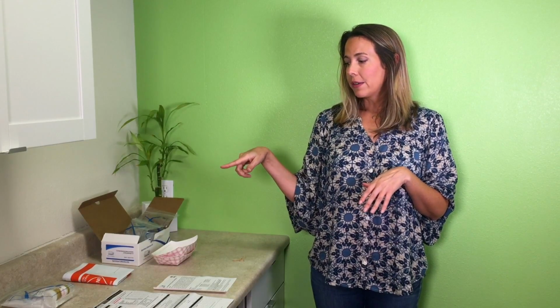So you're all done with your collections and now you're ready to ship. It's best to ship within 24 hours of your last collection. The vials that were in the box were all at room temperature, and the white vial is taken out of the freezer, also put in the box with the gel pack, and then sent away.